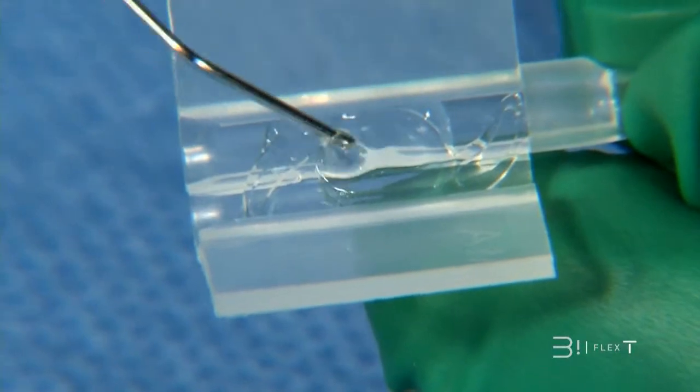Add a bit more viscoelastic gel above the lens. Close the cartridge.